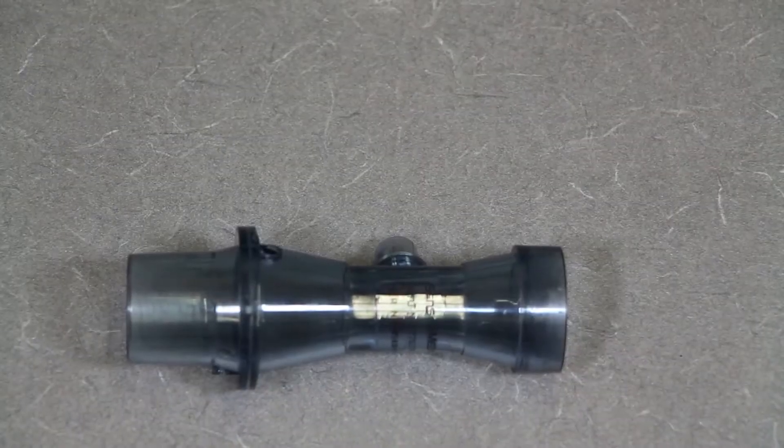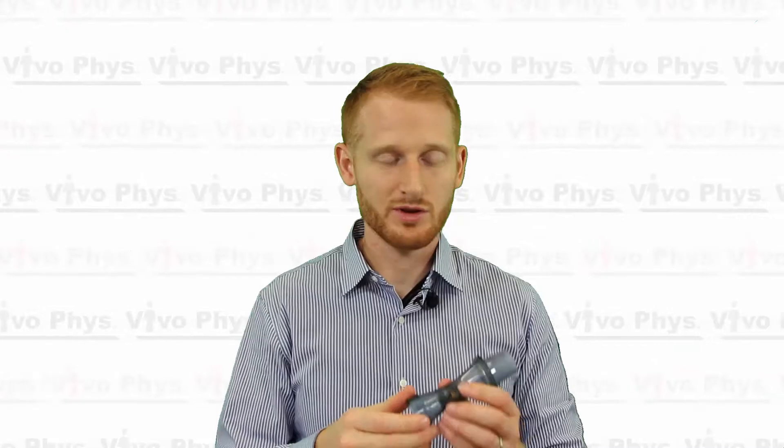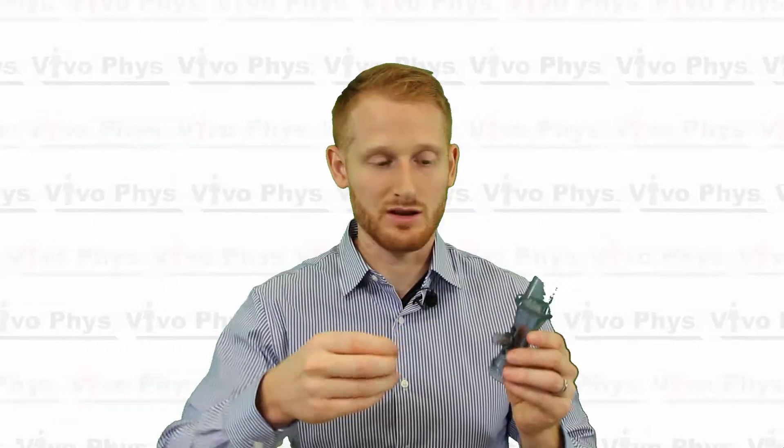Before the participant gets there, take this main air assembly piece. There are multiple things that get plugged into this. On the bottom here, you're going to attach a big gray cord, and that cord is what allows you to sample the volume of air or get a measurement of volume. Plug it in until it clicks.